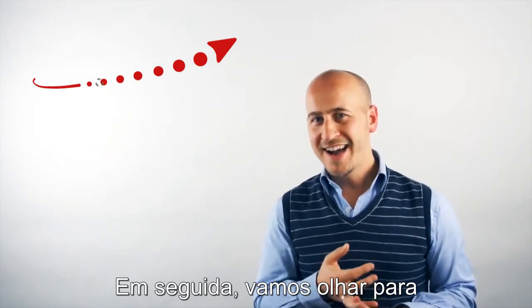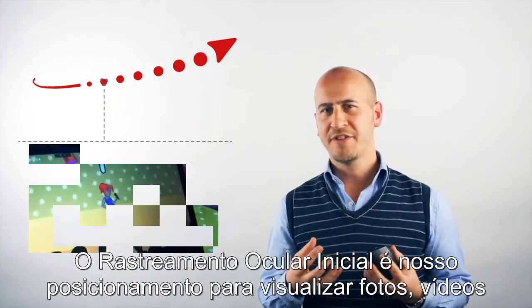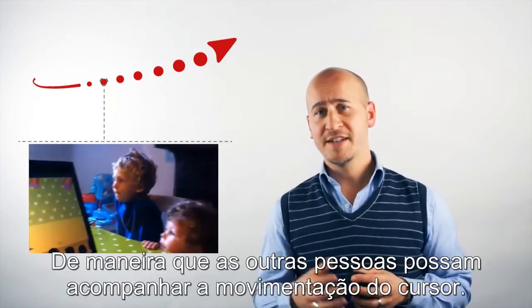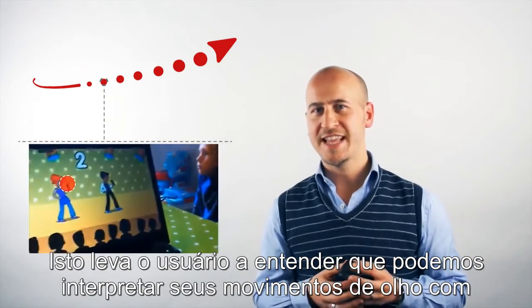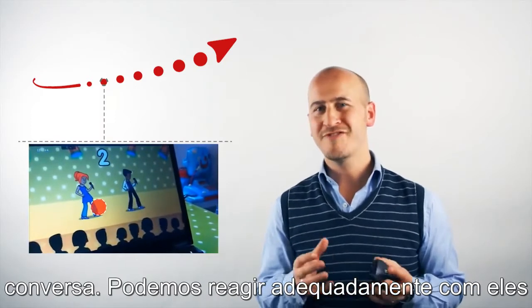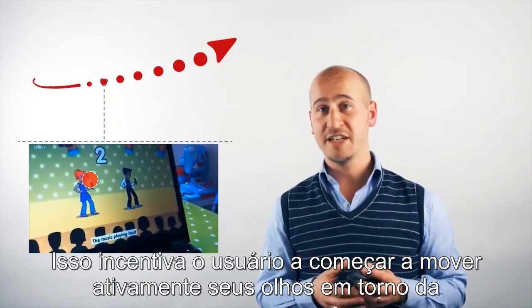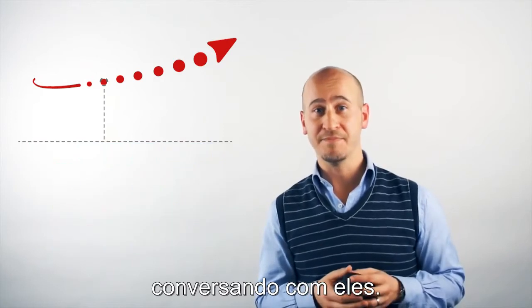Next, we'll look at early eye tracking. Early eye tracking is where we will sit in front of photos, videos, favourite television programmes and the third party can watch where the cursor moves. This leads the user to understand that we can interpret their eye movements into conversation. We can react appropriately with them in front of a screen. This encourages the user to start actively moving their eyes around the screen so that we respond in a conversational way with them.